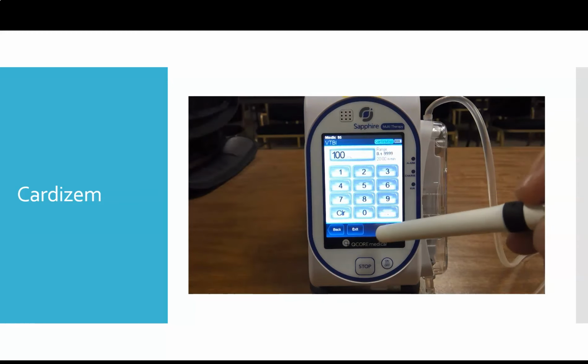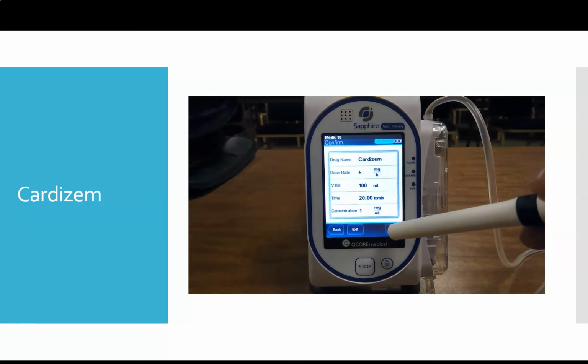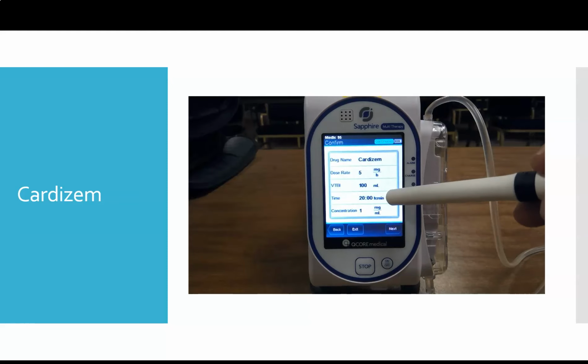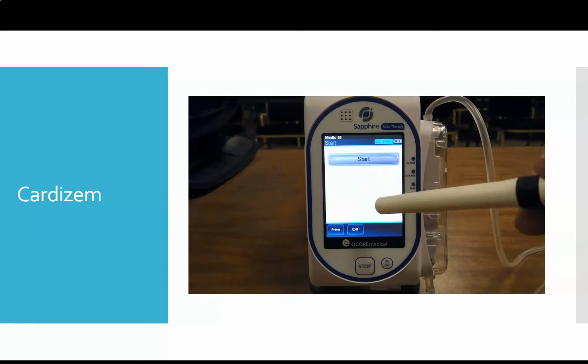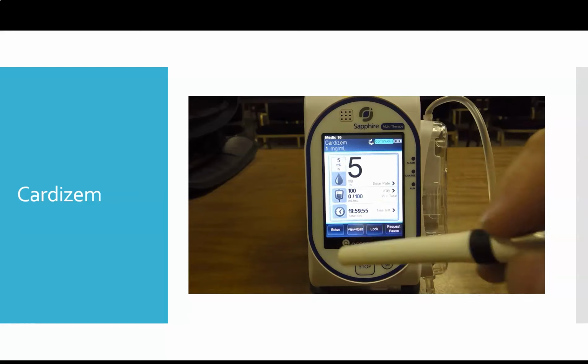Our total volume to be infused is 100 mLs, and it's going to do the math at the bottom on how long that'll last. We're going to confirm Cardizem, 5 milligrams an hour, 100 mLs, and our concentration was 100 milligrams per 100 mL, so 1 milligram per milliliter. We're going to start our infusion.